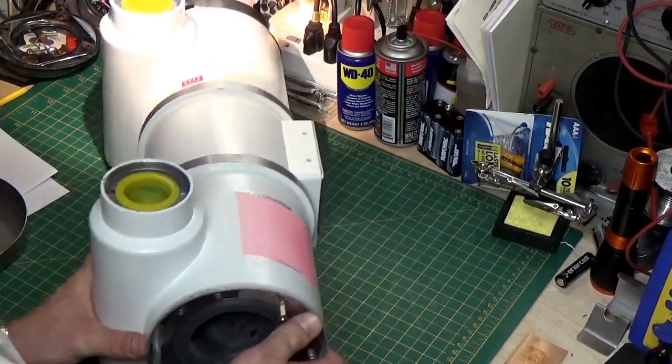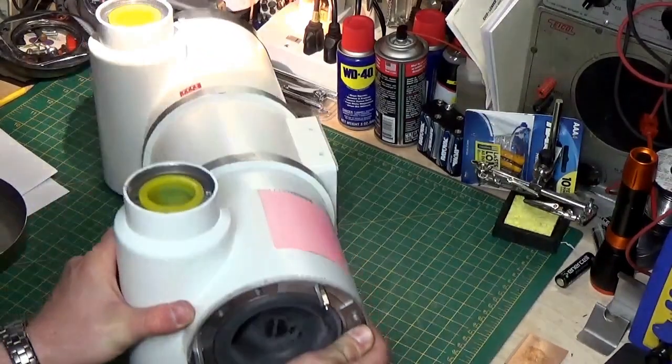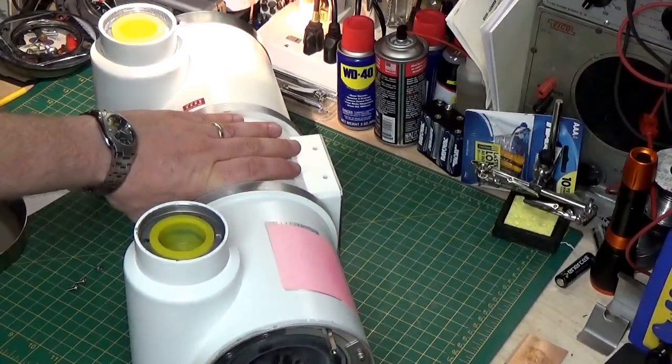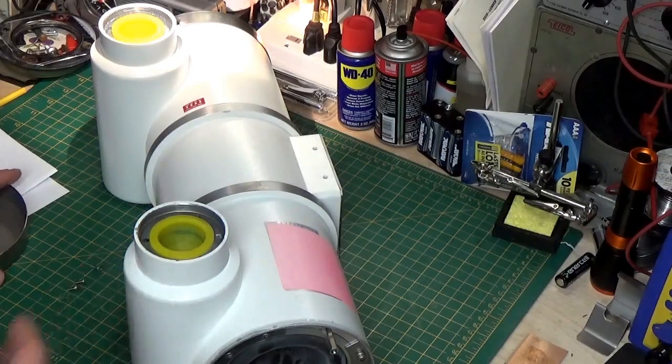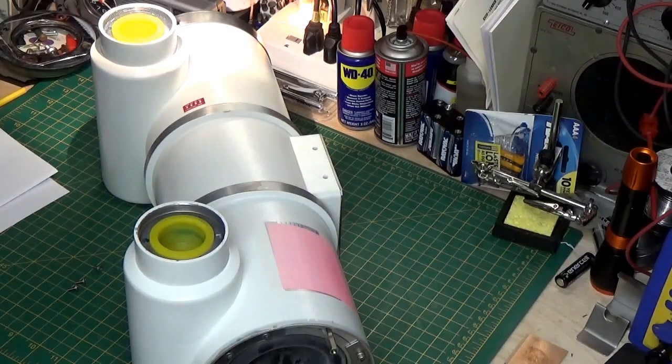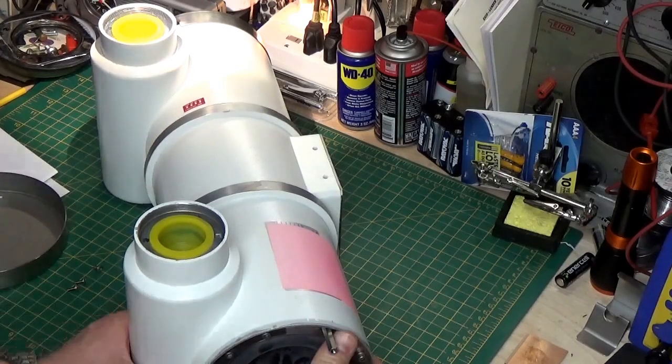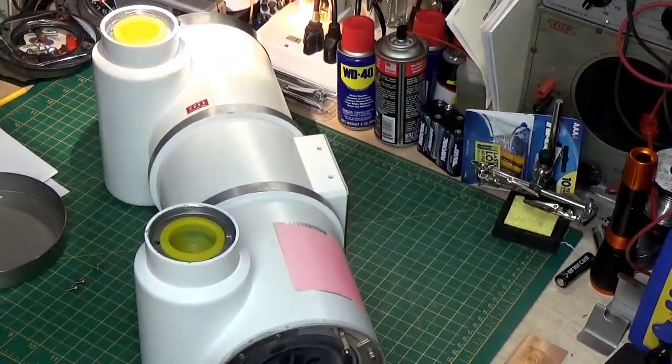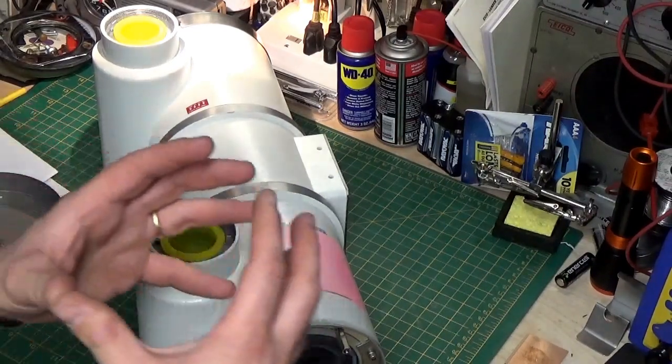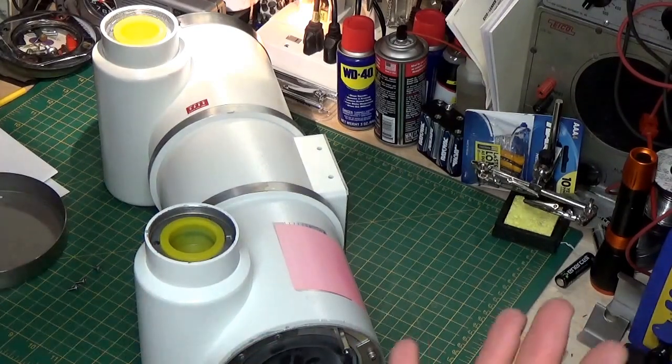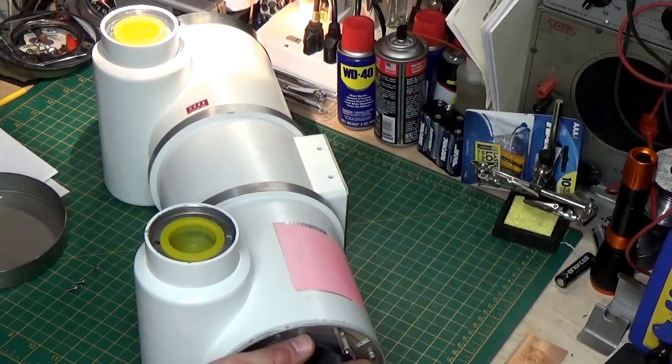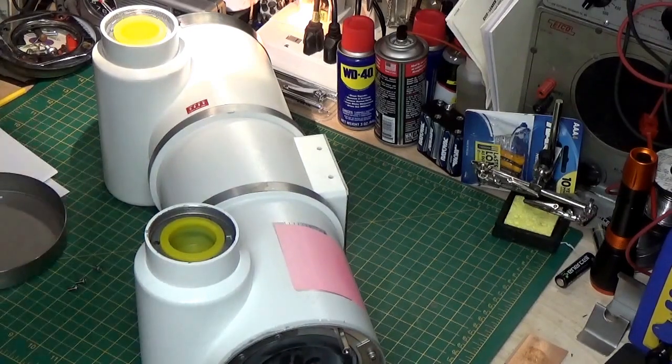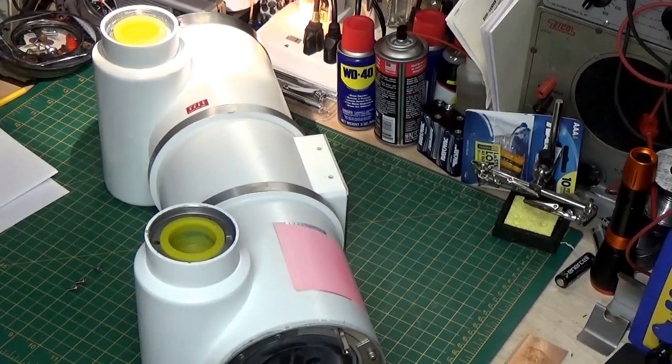If you look on this side, you have a rubber bellows. And that bellow is pressurized in there. All of the air is evacuated from this housing and replaced with oil. It's not under vacuum pressure, but oil has displaced all of the air. If there's even one air bubble in there, the tube is ruined, and it could short out an arc under high voltage. And if you notice this bellow, it's actually in there for a reason. As the tube heats up, and this thing will get hot, the oil inside will expand. If it didn't have anywhere to expand, the tube would burst. So, this actually will come out as it heats up. It will actually balloon out as the oil expands with the heat, and then it will collapse back down as it cools. So, that's kind of a safety measure.